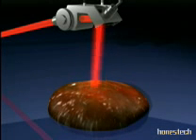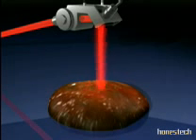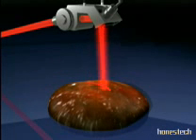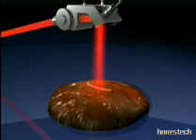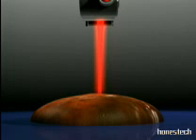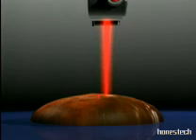The AccuBlade is a device that allows the beam to travel as a linear or curved line with an angular movement at the work area. Various lengths ranging from 0.3 to 5 millimeters and penetration depths ranging from 0.2 to 2 millimeters are programmable. A left curved line and a right curved line are available. The software-calculated penetration depth is based on the average absorption of the CO2 laser by living soft tissue. Depending on the desired length and penetration, the software calculates the required power and pulse duration for the single pulse mode.